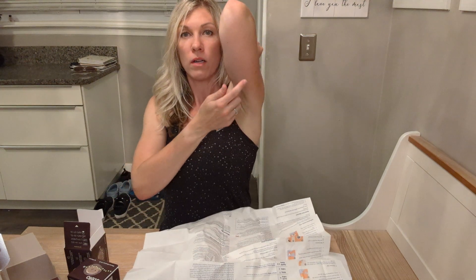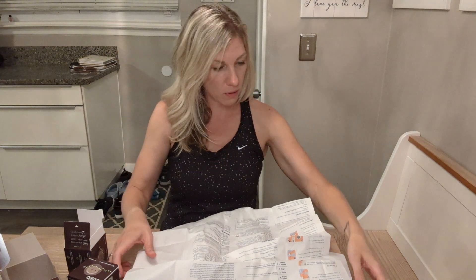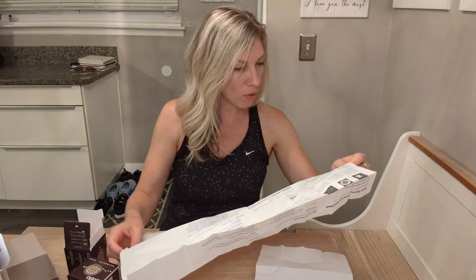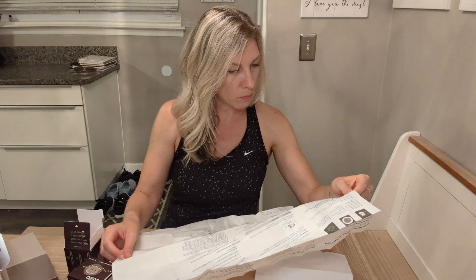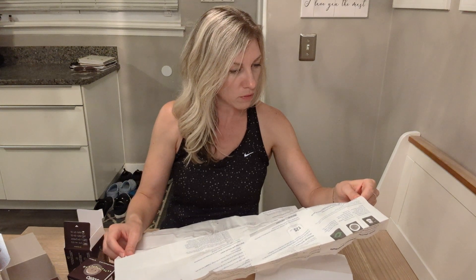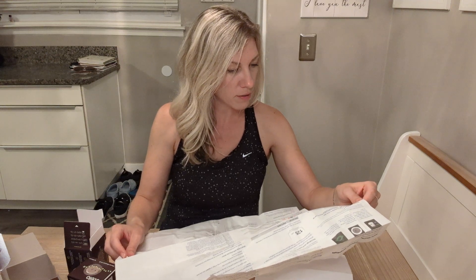I've heard that you really want it directly on the back of your arm and not to the side, because that's where it can get caught — like walking through a door or, for us ladies, putting on sports bras. It says don't wear it on other sites such as your abdomen — only on the back of your upper arm. Avoid areas with loose skin or bony areas where there isn't enough fat, to avoid muscles and bones. Makes sense.